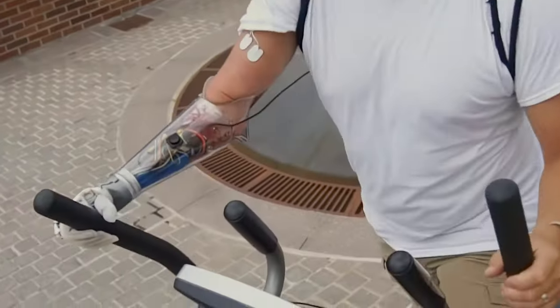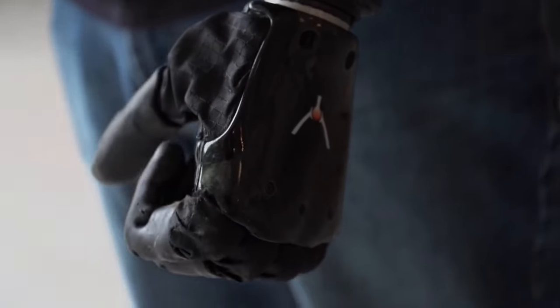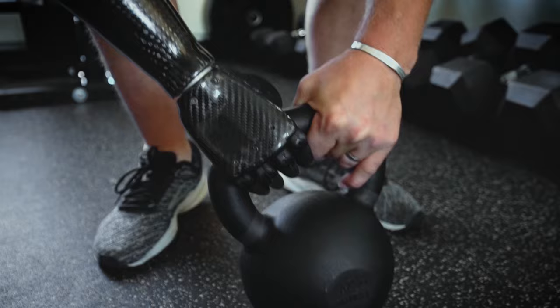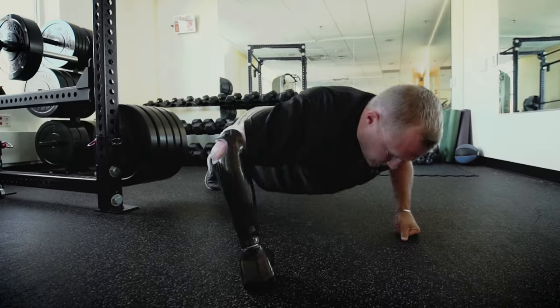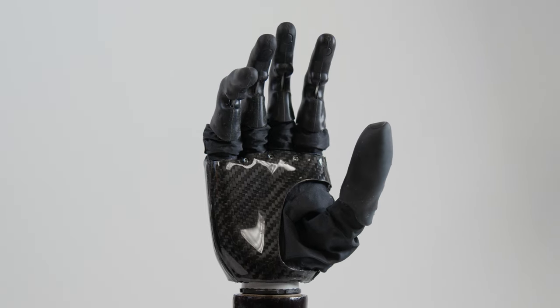Sergeant Anderson has tried basically every prototype that we've ever made of the ability hand over the last seven years and he has been critical to the design of this because if it can survive him then we know it can survive anyone.